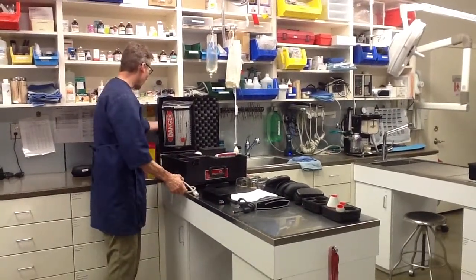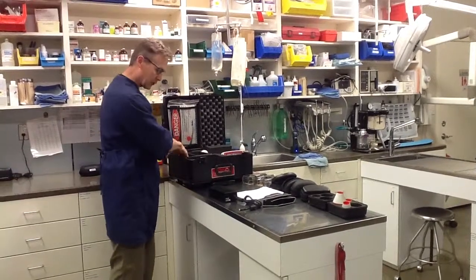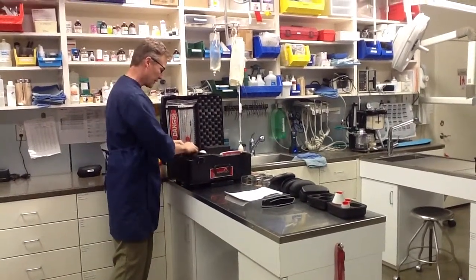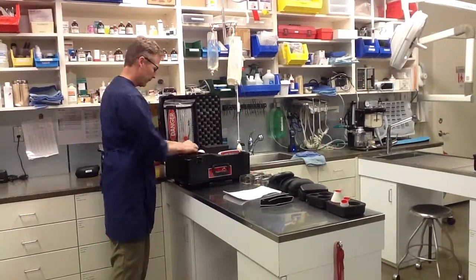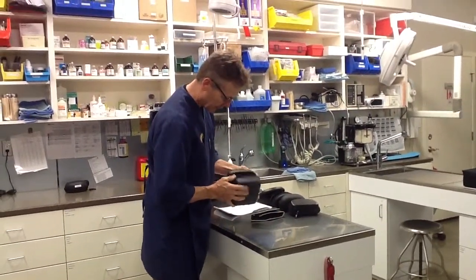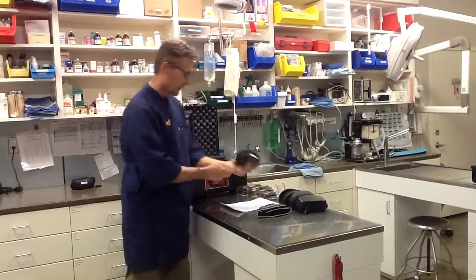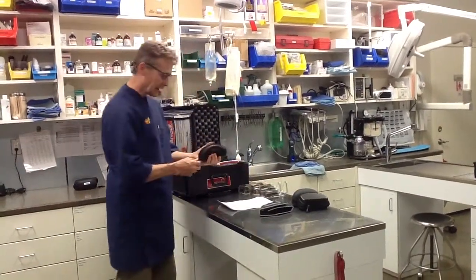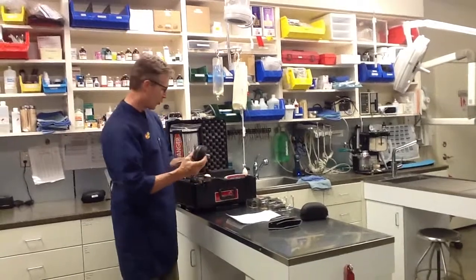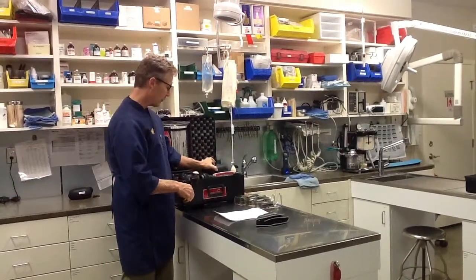Pull the cord out of the wall. It's a little counterintuitive, but it's better to put the cord in first, even though the space is not cut out to fit the cord — that goes in nice and low. Then take the transformer and drop it in on top so you don't have to squish it down as far. Then put your treatment heads away and zip up the case. Drop that in, and then I'm going to put my glasses in here.